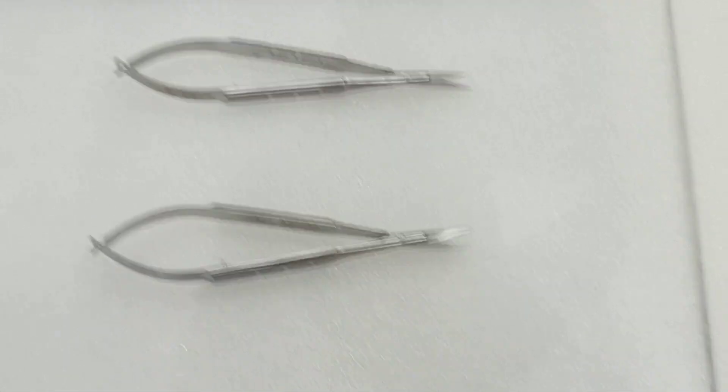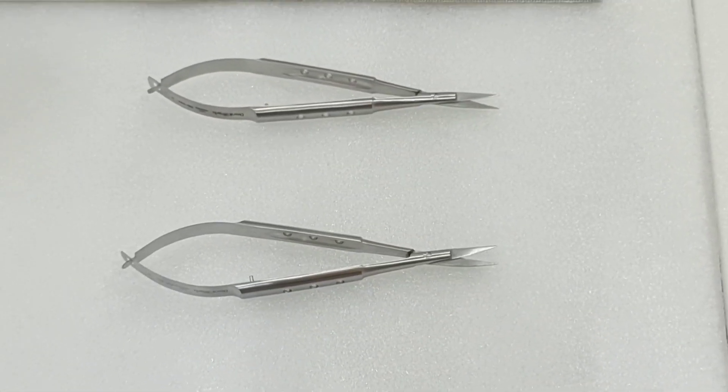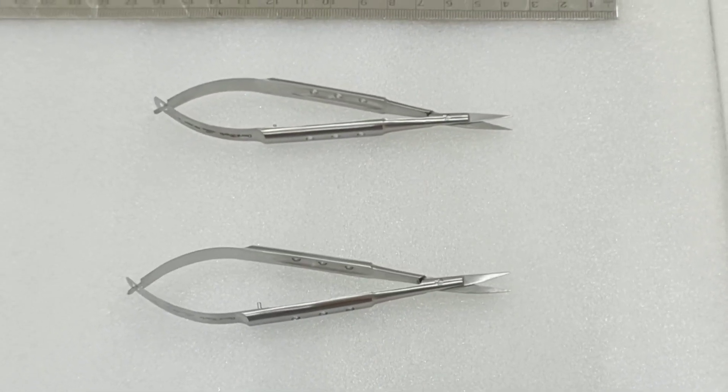Hello Doctors, here Dantmar is again going to show you one more video on castroviejo scissors.